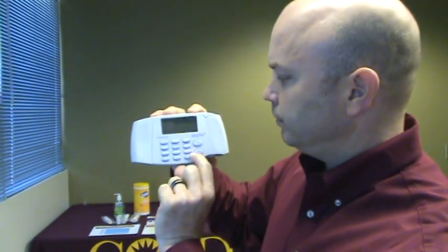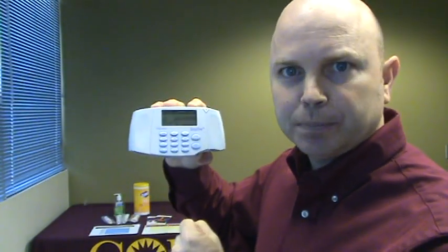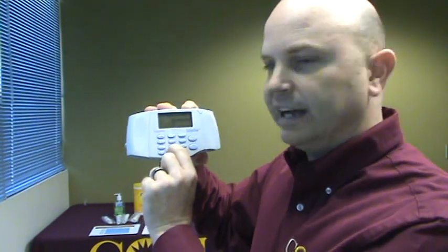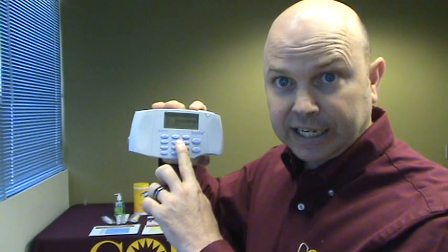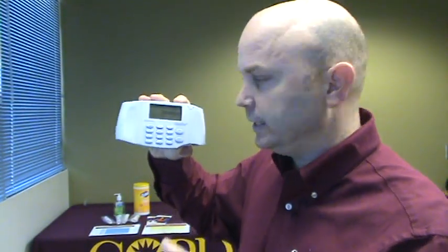The ID field can be skipped — press enter. For the name field, you'll put in the participant's first and last name. We do not save or record any of this data. It's just so that if you make a mistake or need to retrieve data later, you can find them in the data bank, and then we remove it at the end of the event after we calculate the total number of spirometries we did.